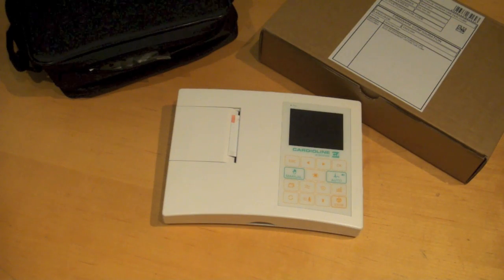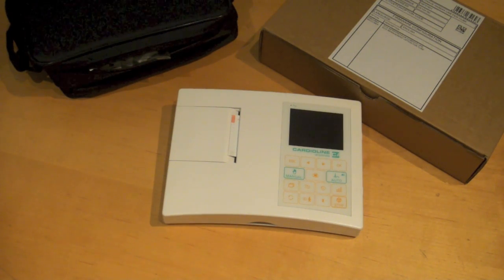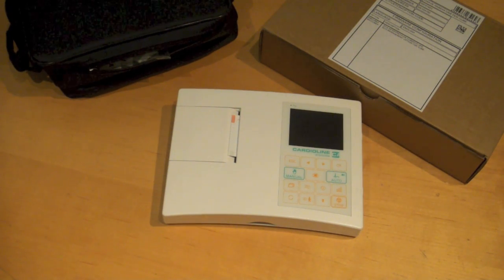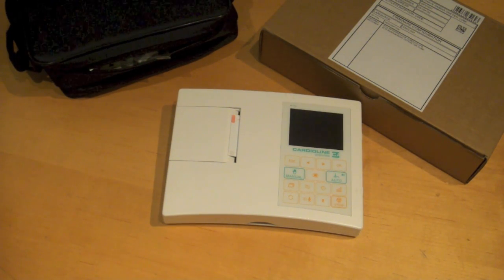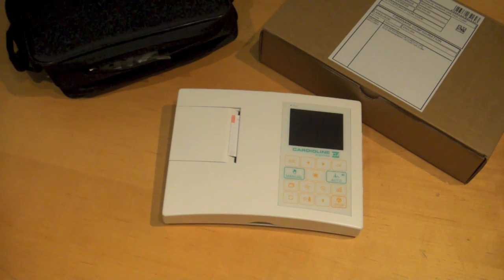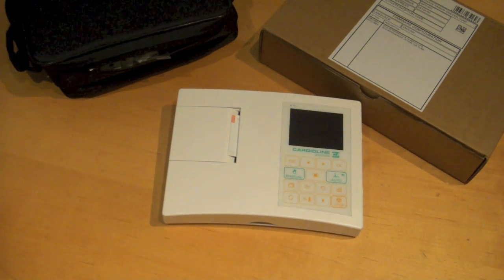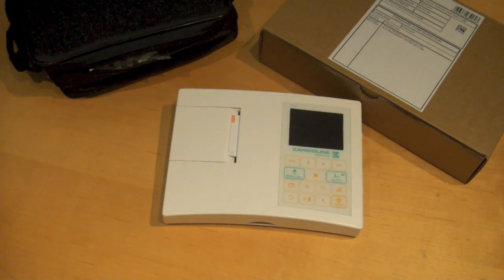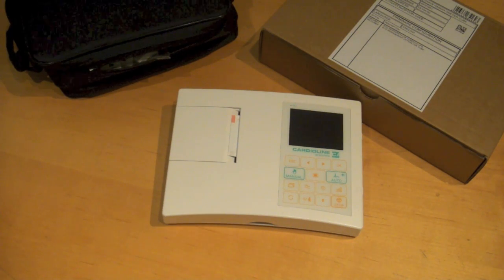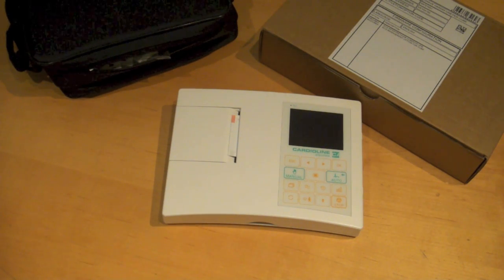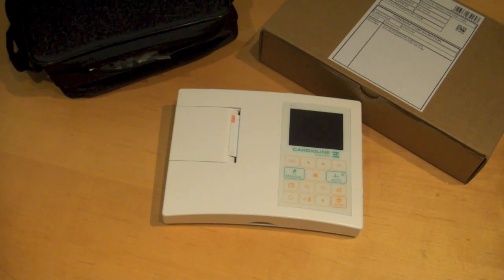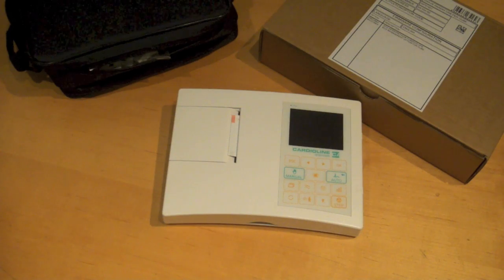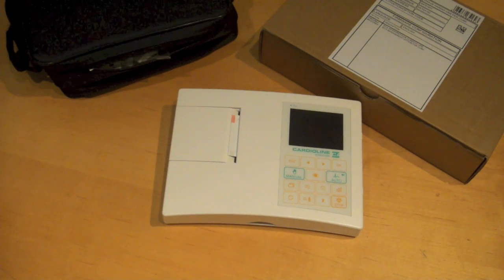It allows you to enter patient data and set up the device. It has another version called the AR600 ADV, which only has a small LCD screen not used for waveform preview, only for entering patient data and machine setup. And the third version is the AR600 view with Bluetooth.